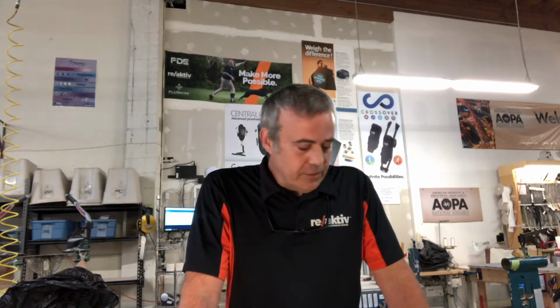Scott from FabTech here. Wanted to take a second today and show some of the things we're doing with our modular dynamic brace system to help with long-term patient care and management of these types of braces in patients.